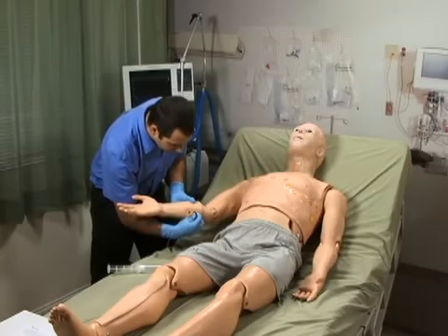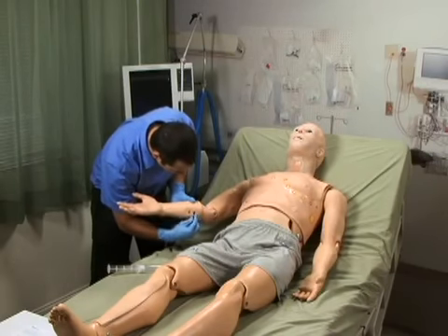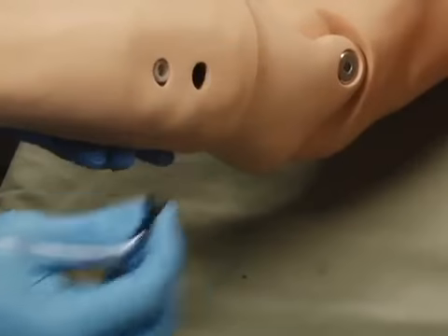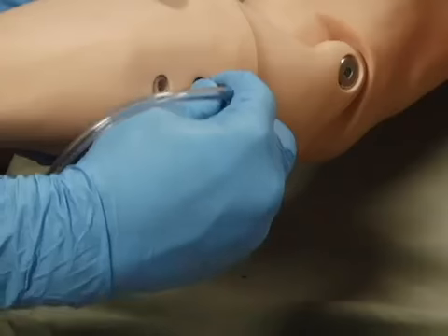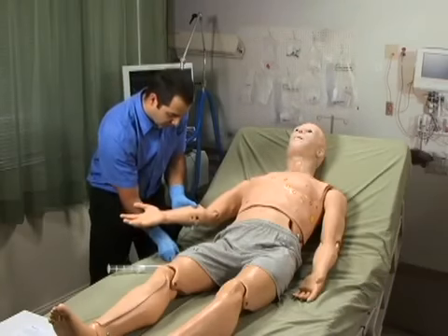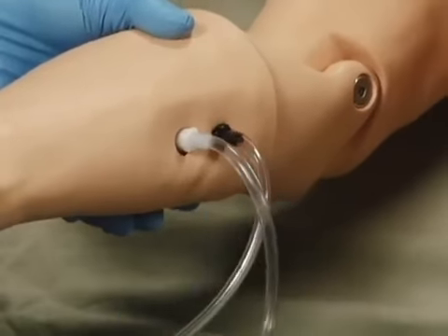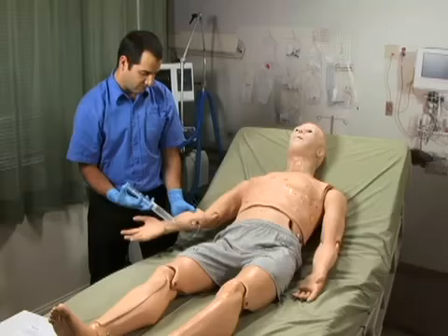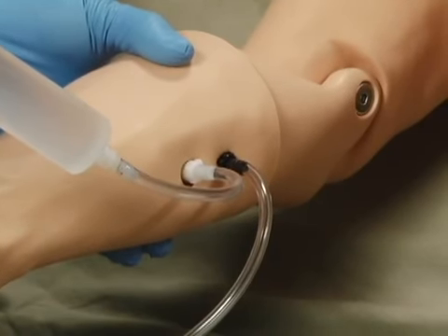In order to start using the drug recognition feature, the system must be purged with clean water. This is done using the following procedure. First, make sure the simulator is turned on, and then attach the drain hose to the black port. Next, attach a syringe pre-filled with clean water to the white port. Once connected, purge the system until fluids can be seen flowing through the drainage hose.